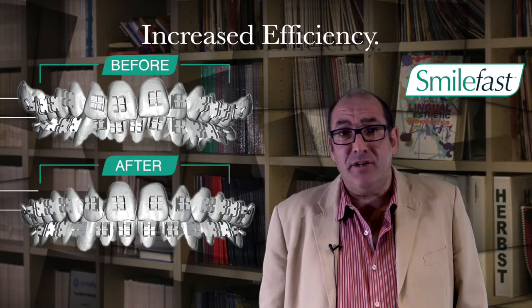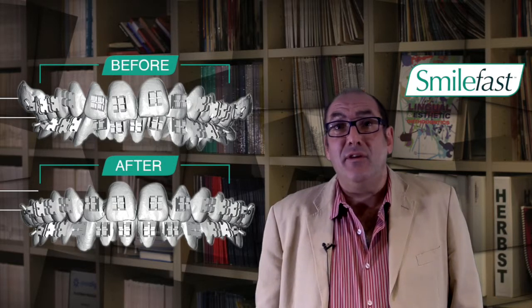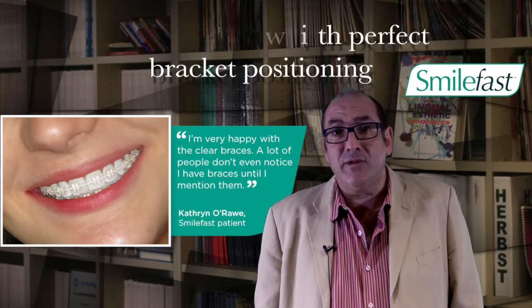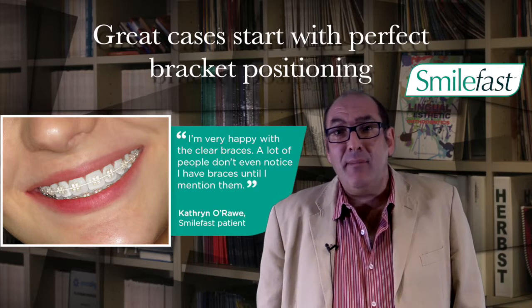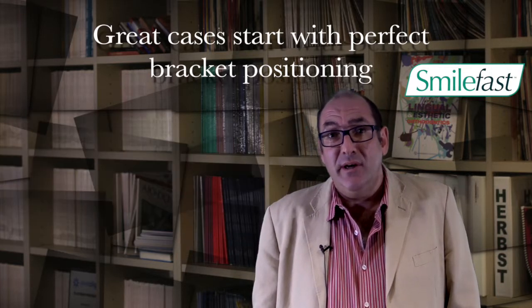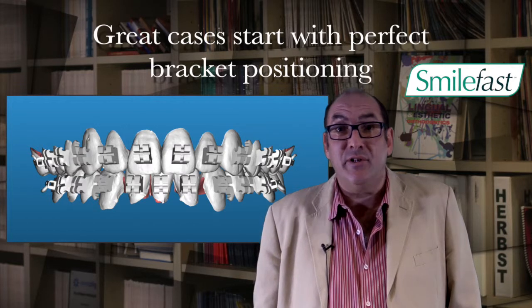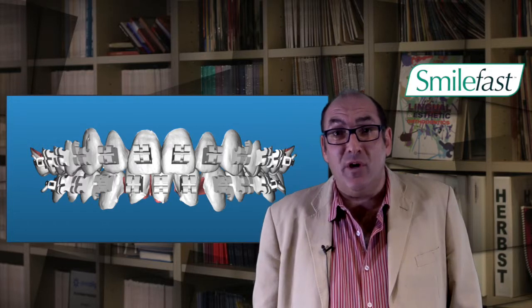There are many advantages for you: firstly, it's a lot quicker and a lot easier to place the brackets, and when you do, you know the brackets are on absolutely perfectly. The outcome and the speed of treatment is directly proportional to the quality of the bracket positioning, so by having precise bracket positioning, your patients will end up with better results in a shorter period of time.